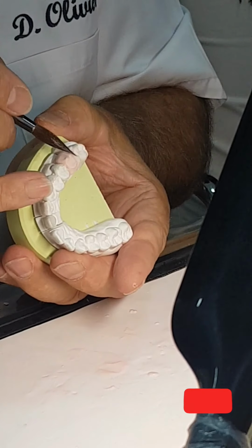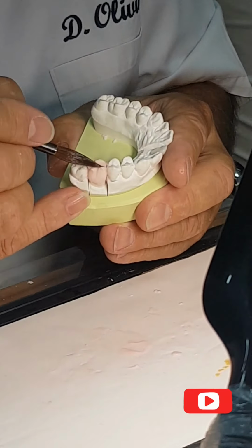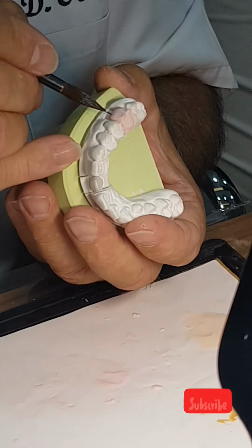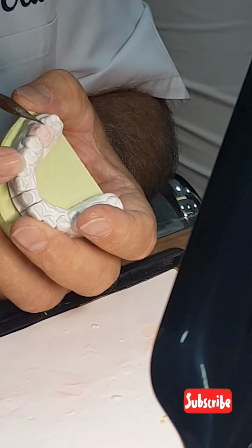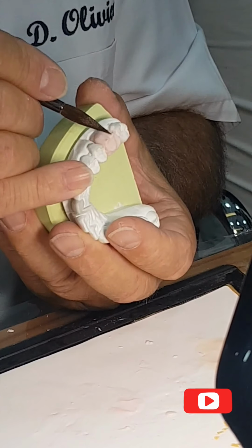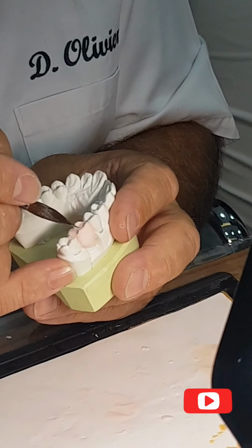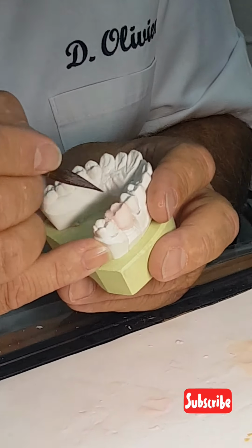Very thin one, look, slowly, slowly. And I clean behind. I want to obtain something so delicate, because in the natural tooth crown, you can imagine how delicate it is. Very thin one here, very thin one here. Look here. I finish here, very clean.